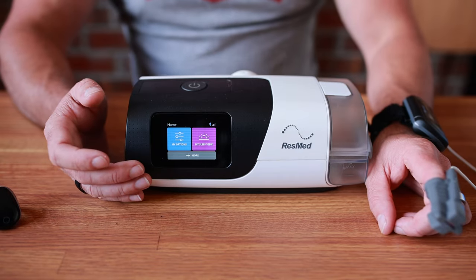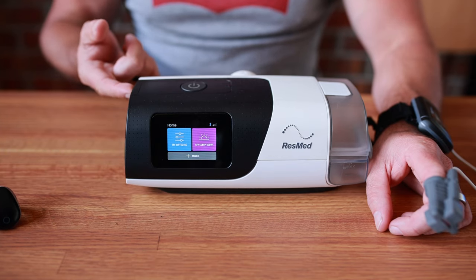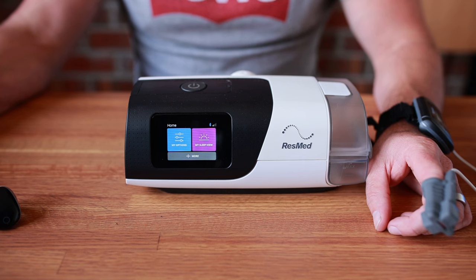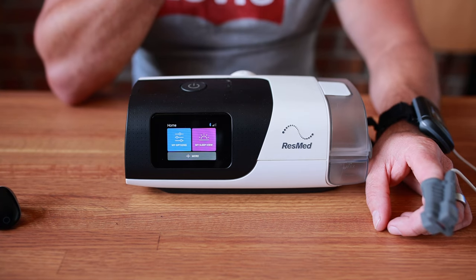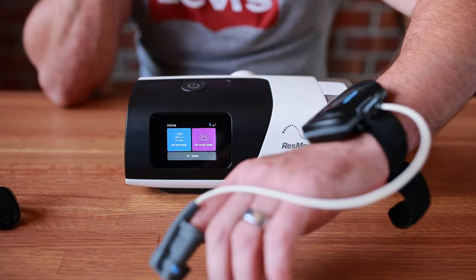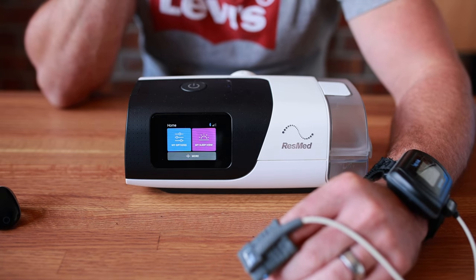You don't get to see your pulse and blood oxygen levels on the screen or anything like that — it just records to the SD card in the side here, and then you need AirView to see that data. Right now it's pointless since we don't have it on SleepHQ, and I'm not sure we'll integrate it because I just don't think many people are going to use this. But that's it guys — a bit of a letdown.